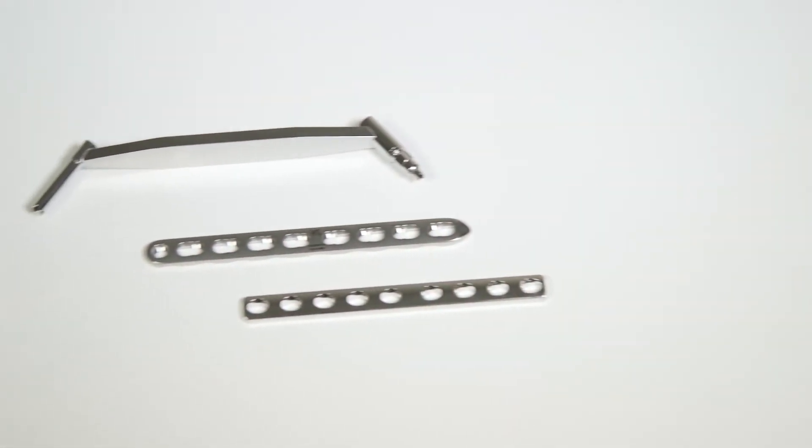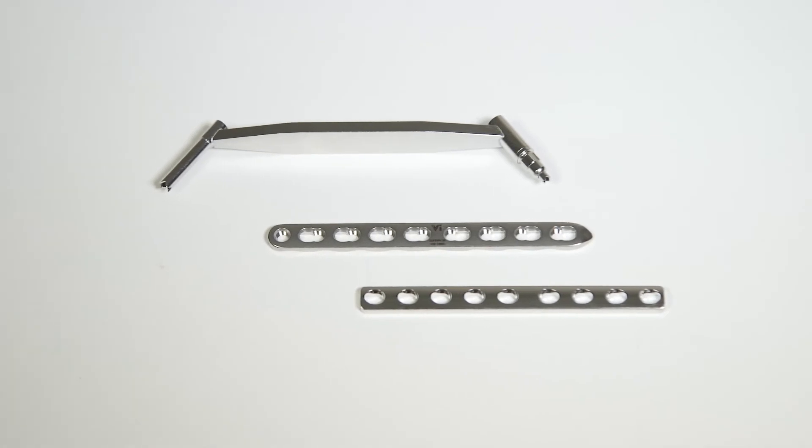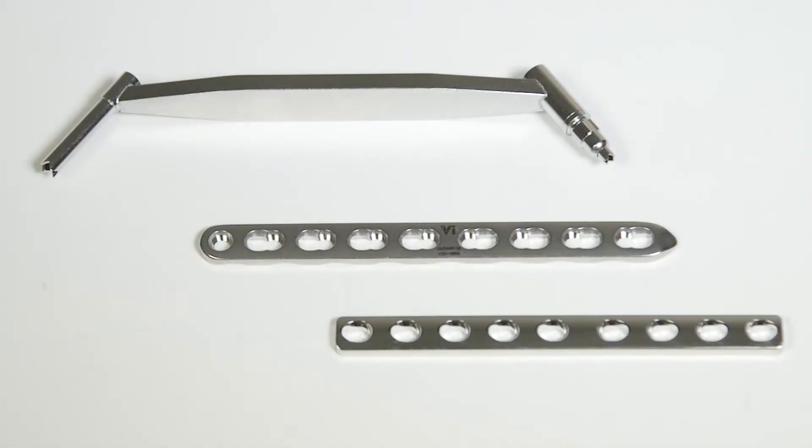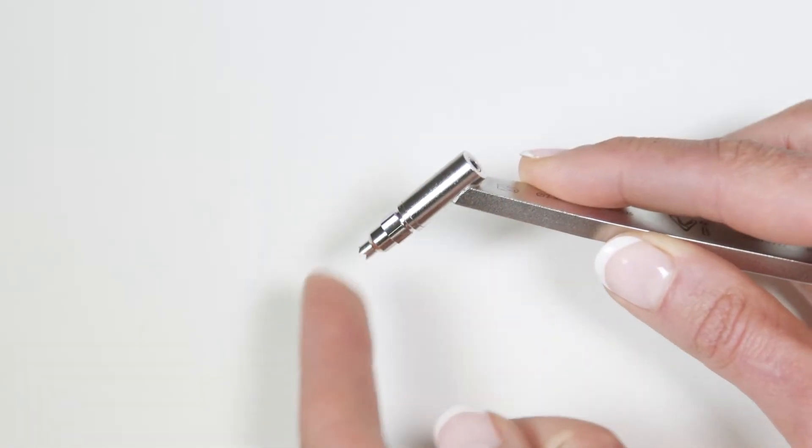The Universal Drill Guide can be used with either a Dynamic Compression Plate or a Dynamic Locking Plate. The Universal Drill Guide has a sprung tip.